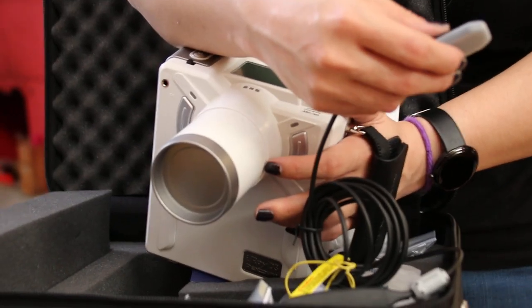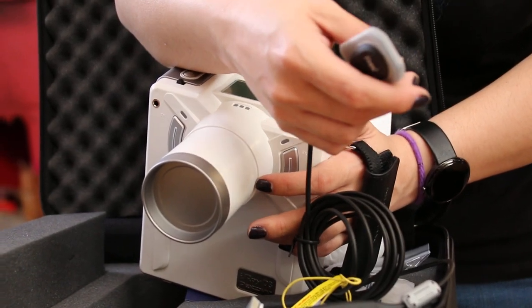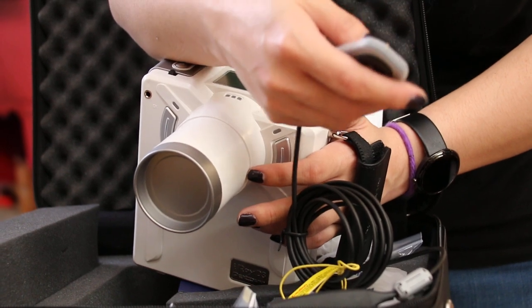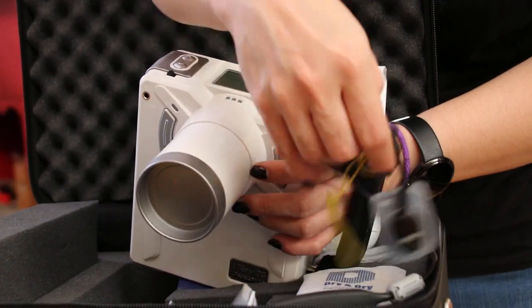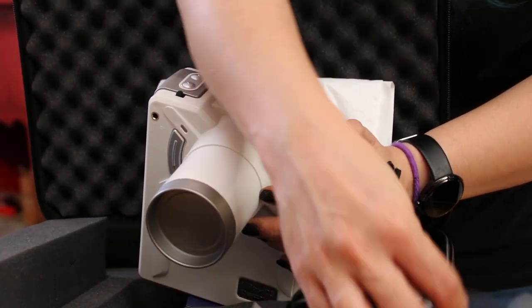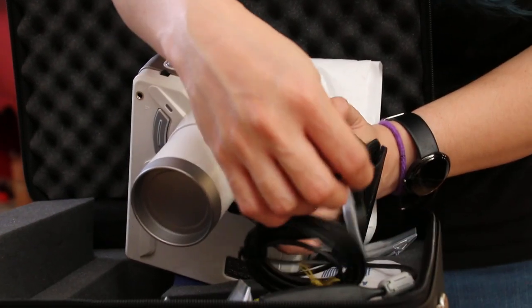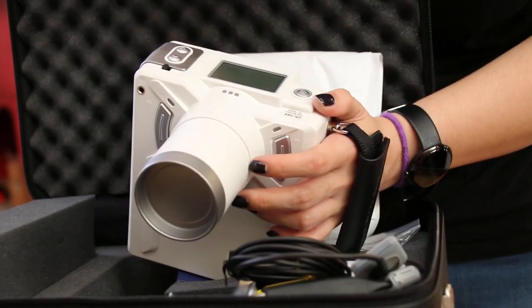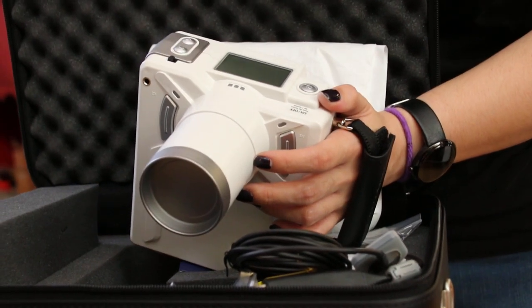So this one is the latest in x-ray technology? Yeah. And where is it made in? Korea. The radiation is only 7% of the normal.